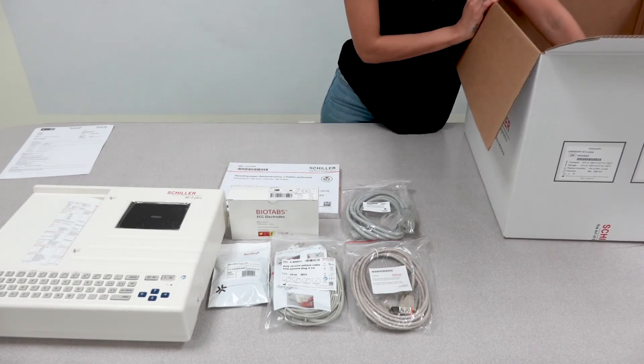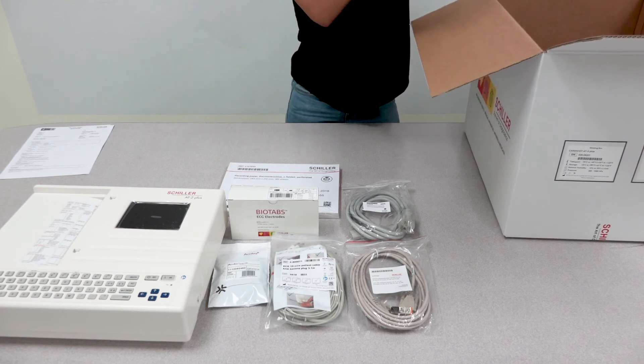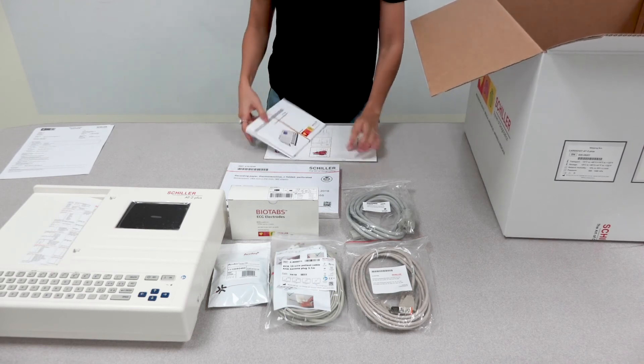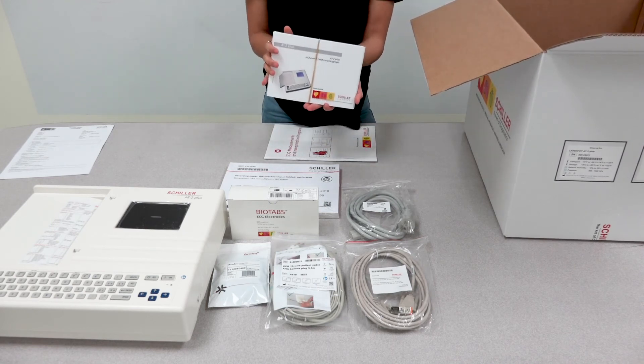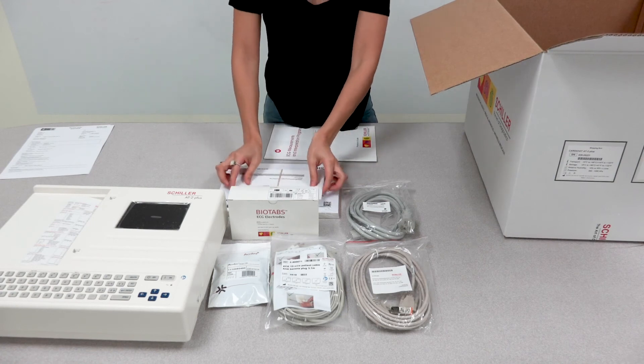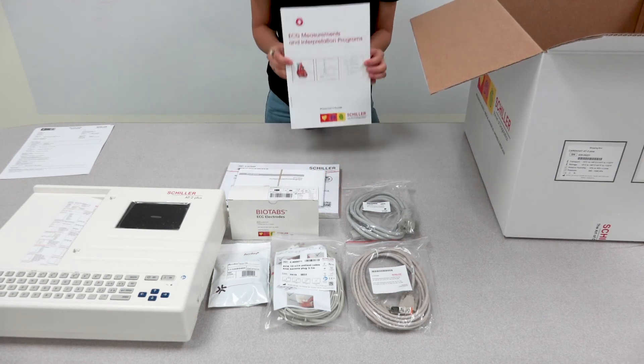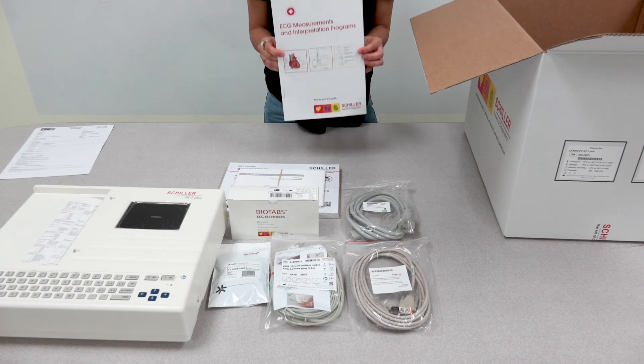Last but not least, you have two manuals: your user's manual for the unit and an ECG measurements and interpretations manual.